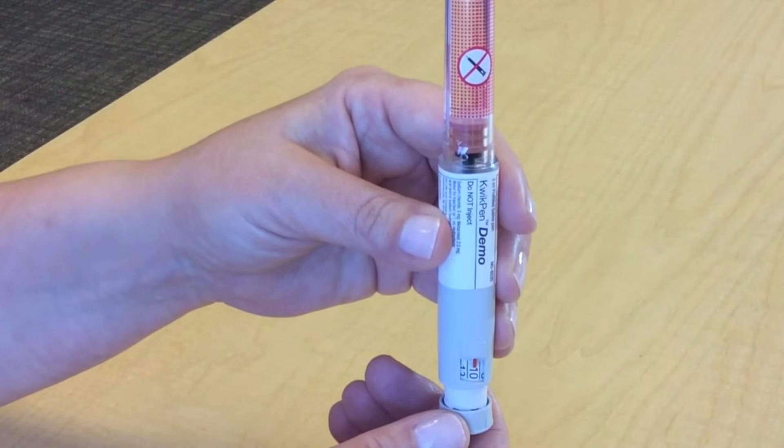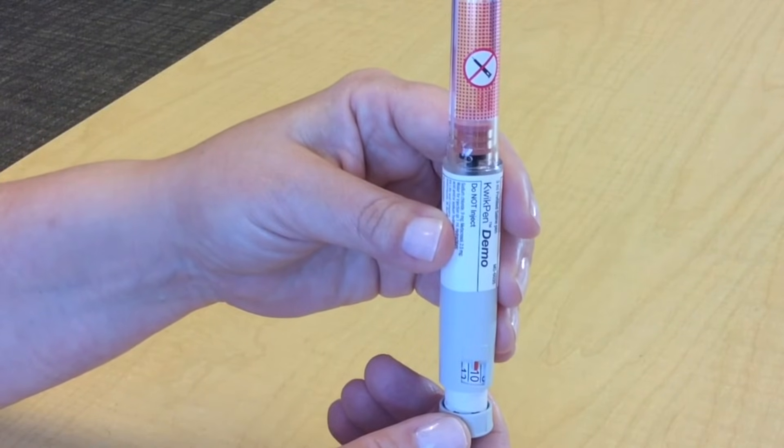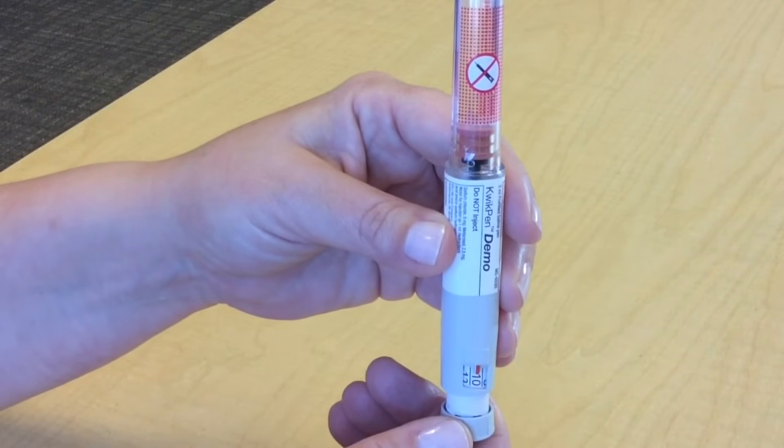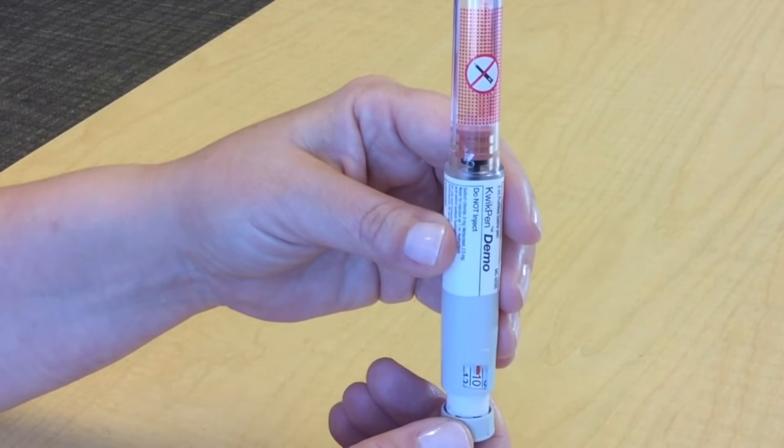If you need a second dose, you can inject what is left in your pen, and then use a new one to give the rest of your dose. If you prefer, get a new pen and take your full dose from the new pen.